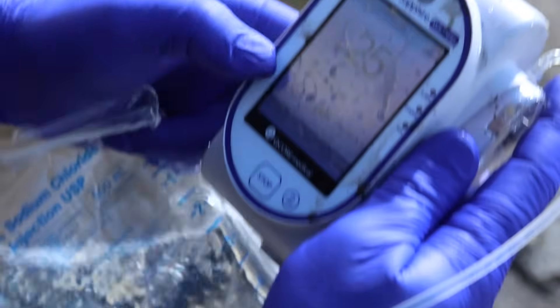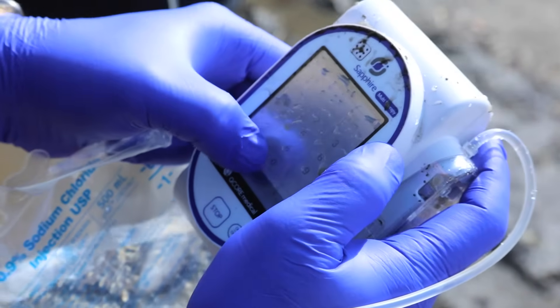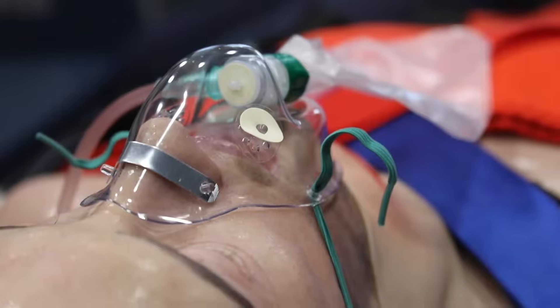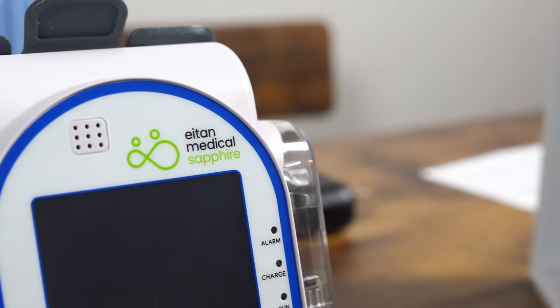Even with humidity, blood, or in the COVID days, hand sanitizer — things like that really make for great operation. Let's talk about some of the stuff that's real to our end user, to the EMS medic that's going to be out there on the street using this. Why is this going to be such a great tool for them?